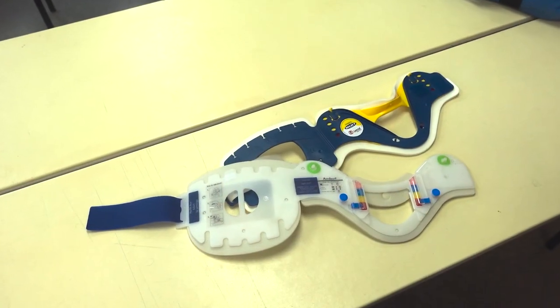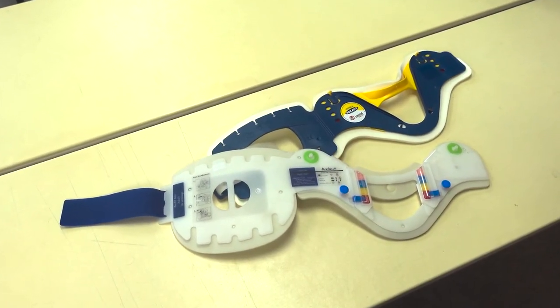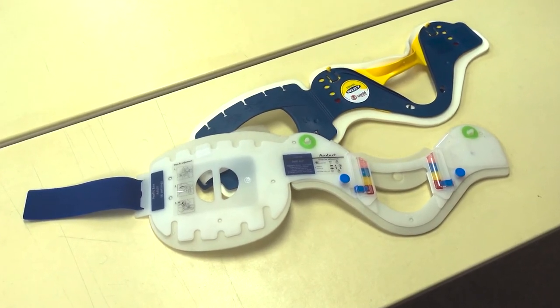The two types of collars we are most likely to encounter are the Ambu Perfit and the Laerdal Stiff Neck. Both collars are sized and applied in a similar fashion.